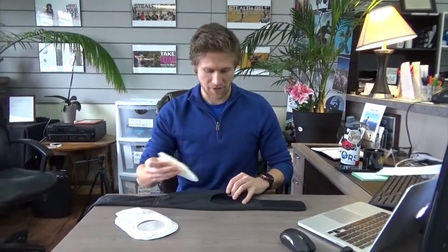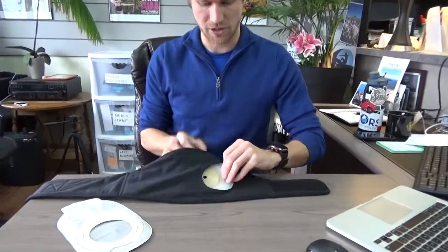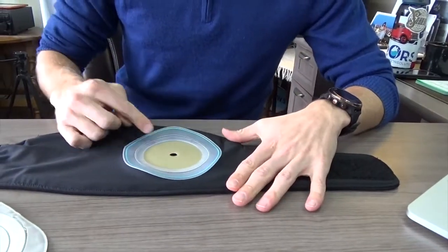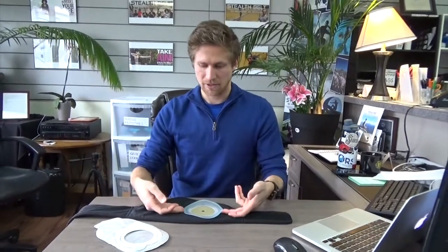The reason we do that — and I'll demonstrate it inside the belt — is that this entire top piece is going to be an anchor point within the belt. It's going to lay flat inside of there and give you a really secure fit. I'm putting this in backwards just so you can see how it sits inside the belt.